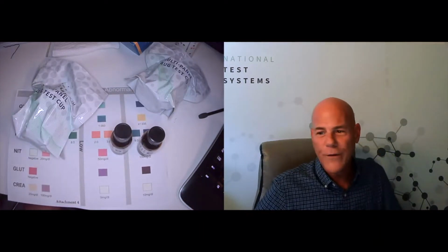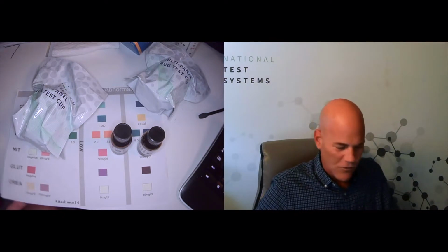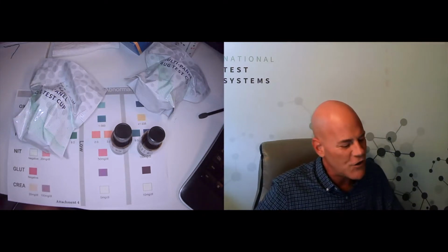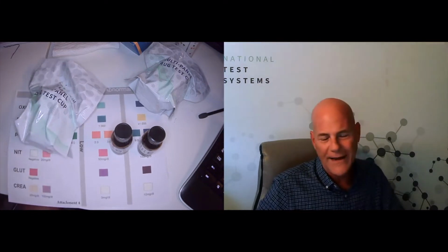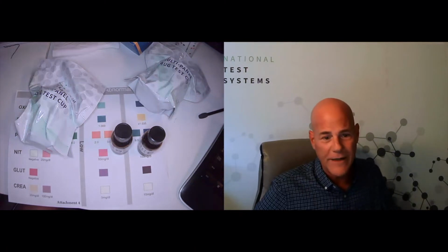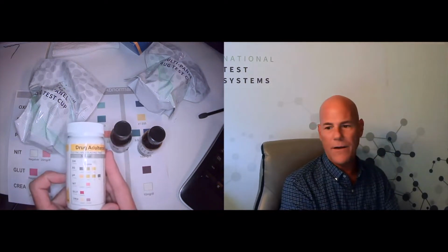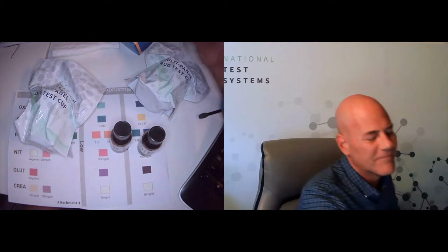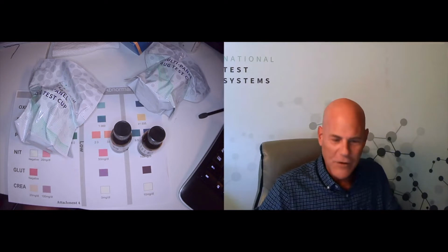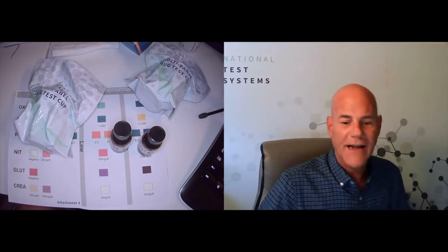Now, one last thing before we get started, two things I should say. Number one, the colors you're looking at on your monitor and this horrible printout of a scan aren't going to be 100% accurate. So when you are doing this at home, don't use the handout. This is more for demonstration purposes. Really, you want to use the printed color cards that come in each box of tests. Or if you're using the separate adulterant strip, they have it on the label on the bottle itself. They should be close, but there are so many different printers and so many different monitors. So use the one that came in the box of cups. That way, we know the color is accurate, and it will help you.